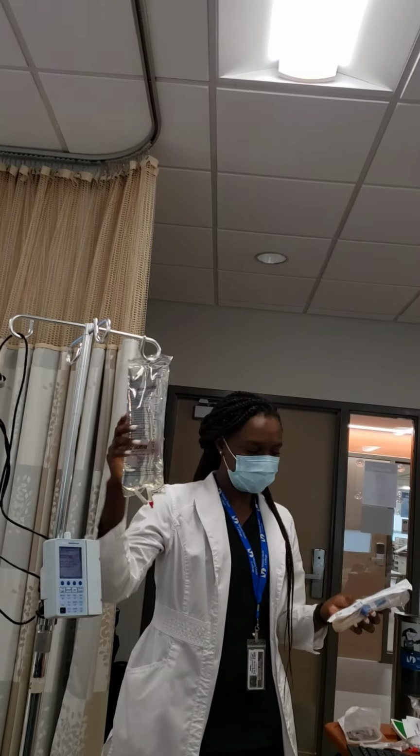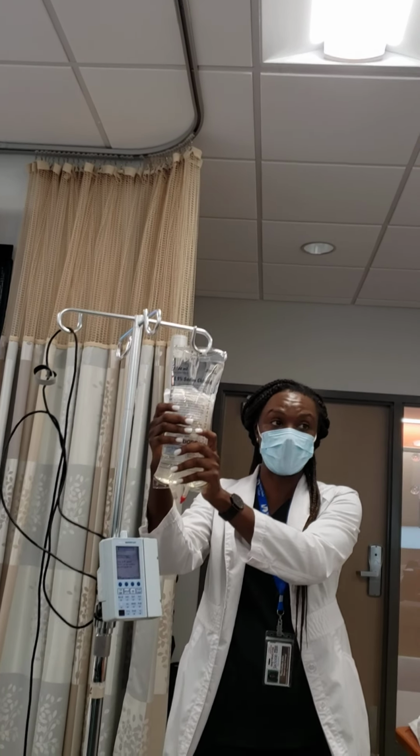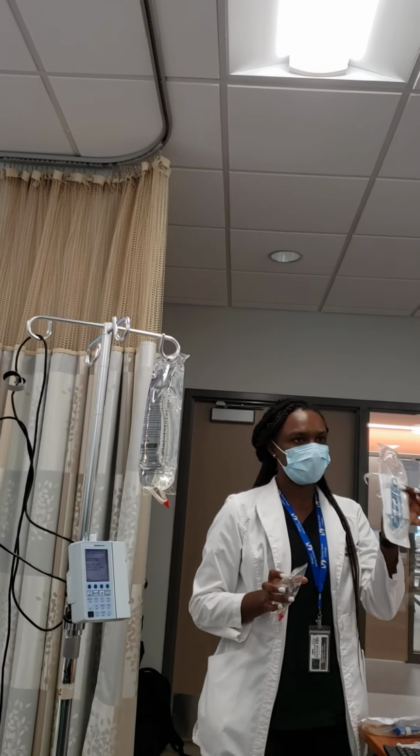Okay. You have your bag. Okay. Your primary tubing. Okay. So and that's it. Okay. This is only for your primary. Okay. But I'm gonna show you now when you're gonna do your secondary. You're gonna need your secondary bag and your secondary line.